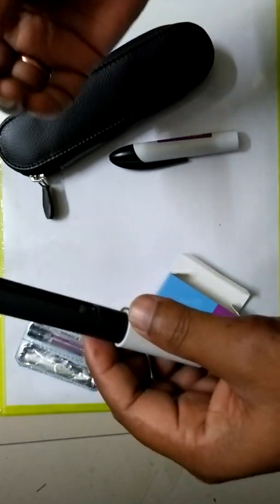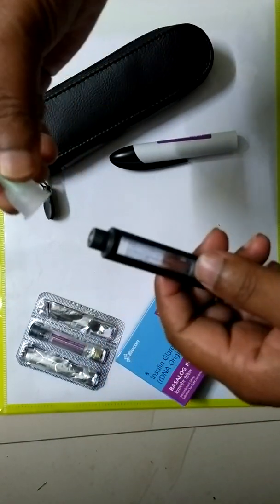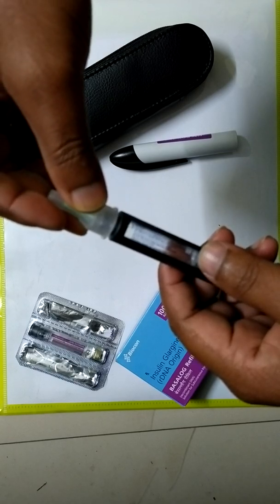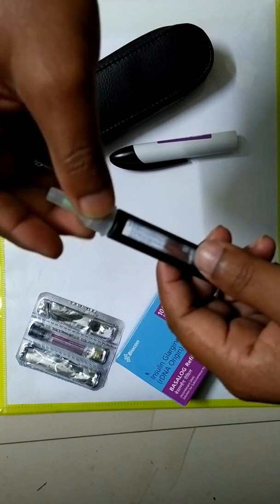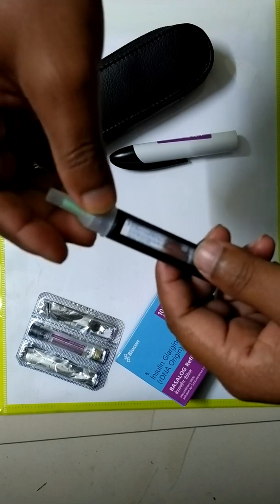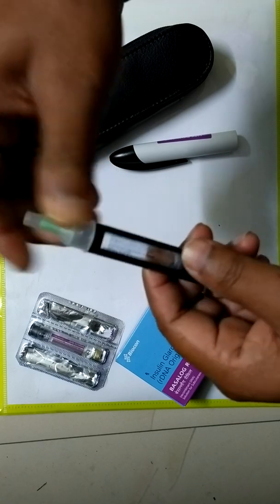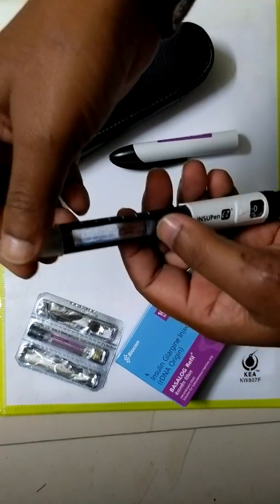Now this is the needle. This needle will go like this and screw it clockwise. The needle is fitted.